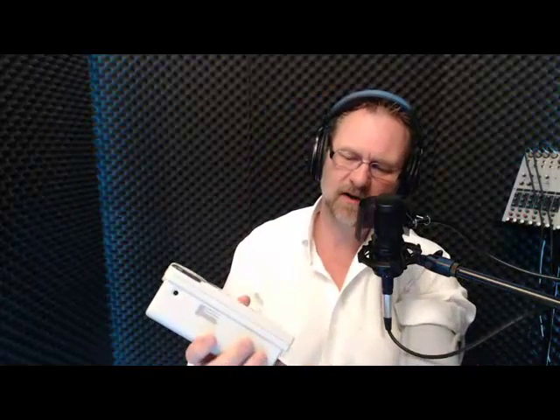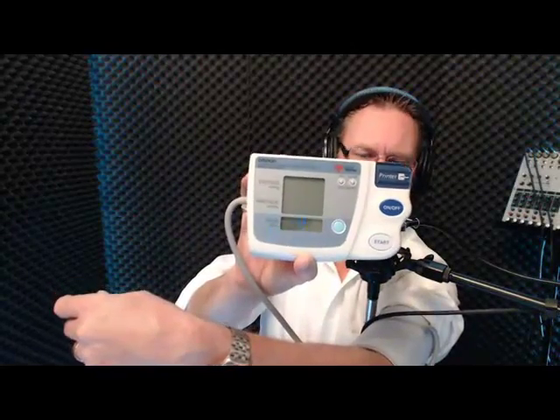Next is blood pressure. I have what they call white coat syndrome, where I go into my doctor's office and my blood pressure is up quite high — maybe it's psychological, I don't like going to the doctor. My blood pressure could be 150 and above at his office, whereas I'll come home and record it and it can go down as low as 120. My doctor understands that. We've got an Omron model HEM705CP. Because I'm a diabetic, the doctor said to go out and spend some good money on a blood pressure machine. This was a little over $100. It comes with a battery-operated printer. This blood pressure machine is awesome.